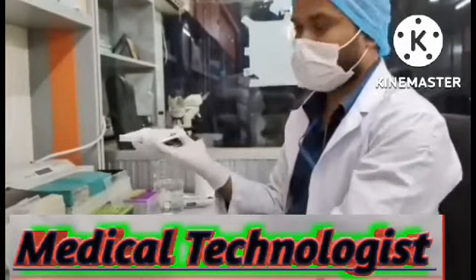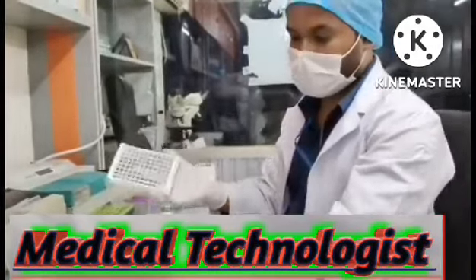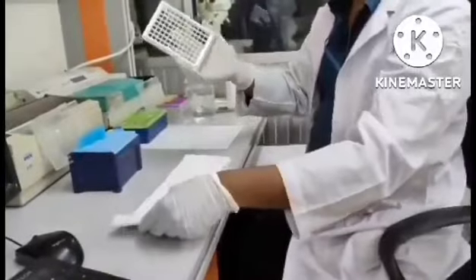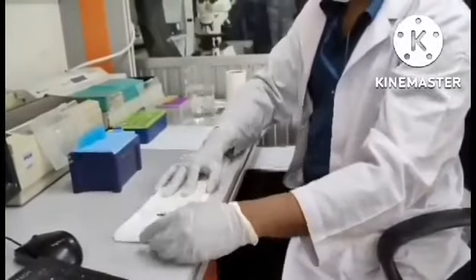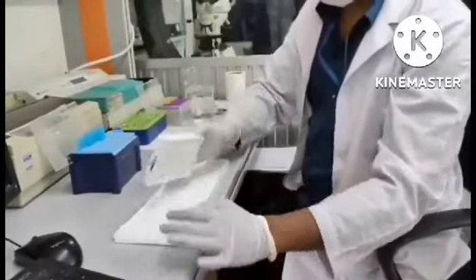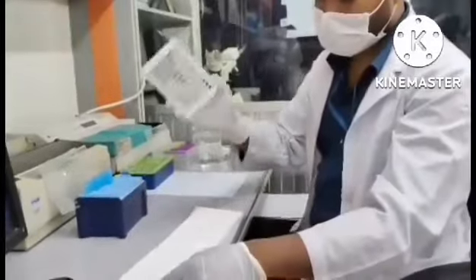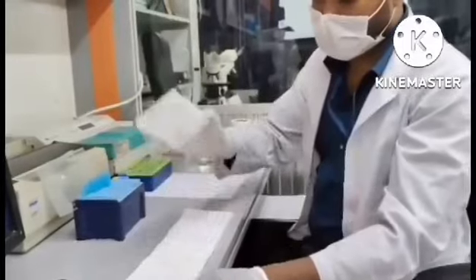Wash it 3 times. Control with a tissue paper. Now I am going to put it with the tissue paper. Put it back.